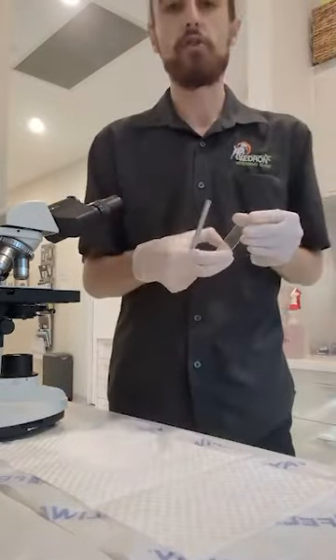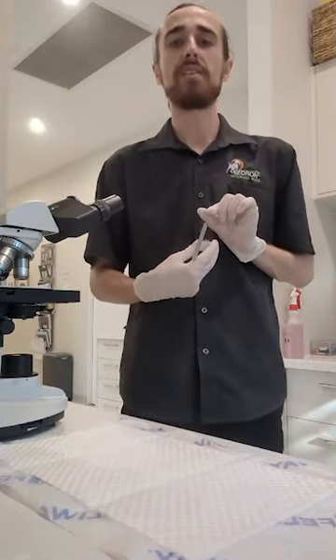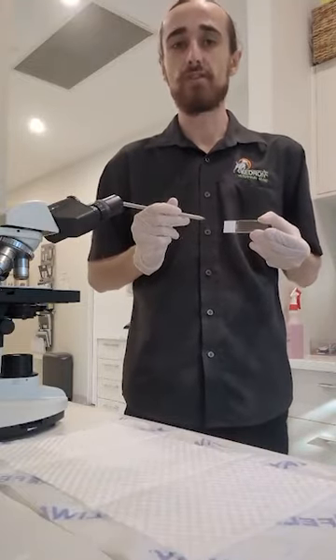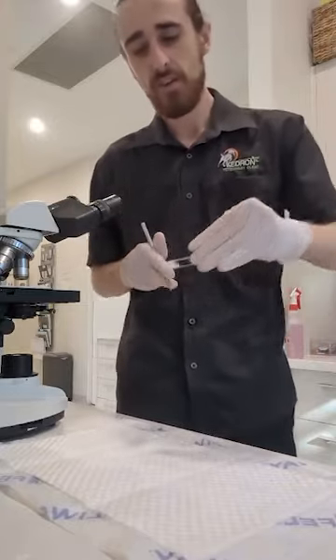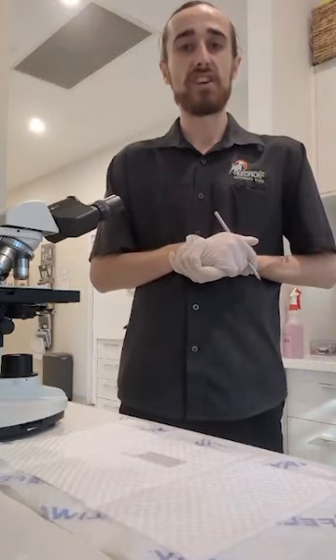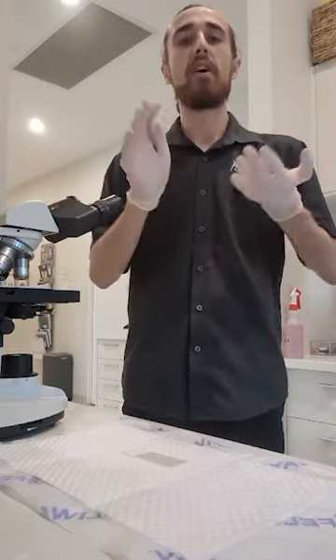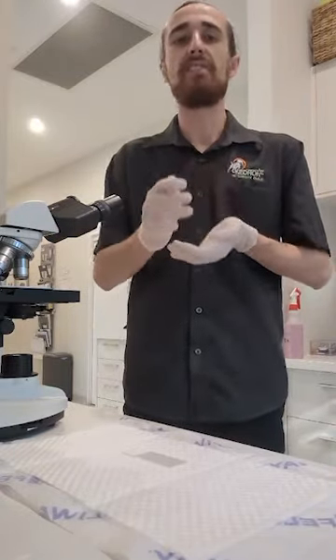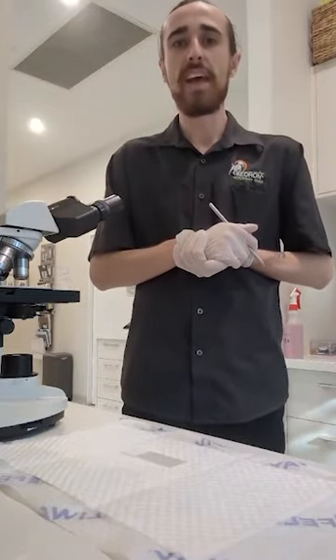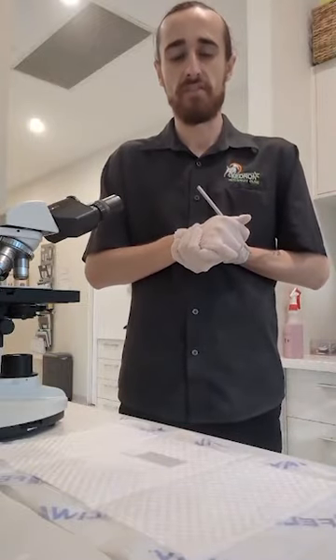Now, before we've begun, we have correctly cleaned the microscope slide using a Kim wipe to remove any of that residual oil, dust, or foreign debris that may have been built up, and to ensure that it is a clean microscope slide ready for testing. So we must make sure that we are labeling the slide to ensure clear patient and client correspondence, and to ensure that the correct patient's blood and test is being run for the correct patient. If this was being sent to an external laboratory, they wouldn't have any understanding of the patient that we have handled, and they must ensure that everything is correctly labeled to ensure that the tests are being accurately performed.